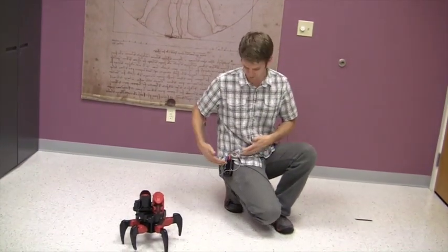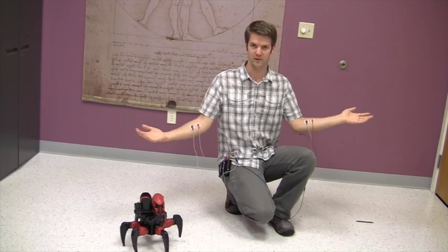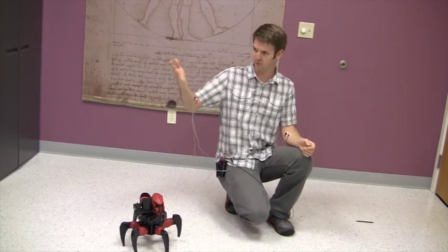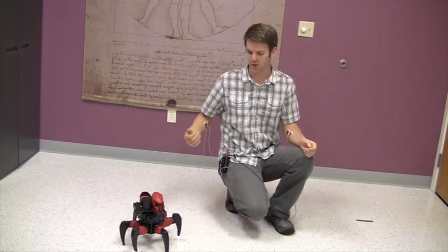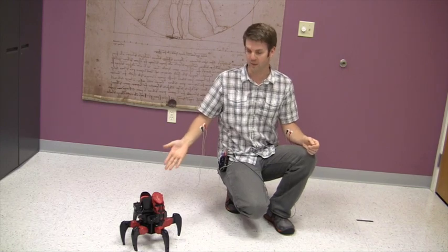Now that I'm all wired up with the BioRadio, I have two channels of EMG set up streaming the data to the computer. I can now control the robot wirelessly.